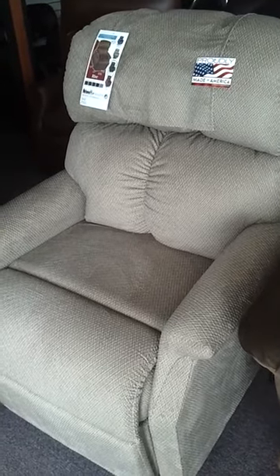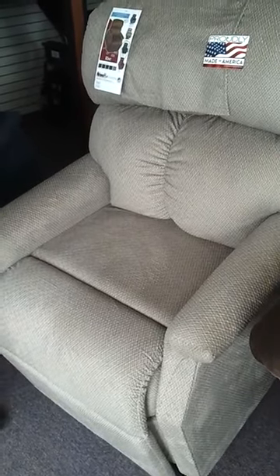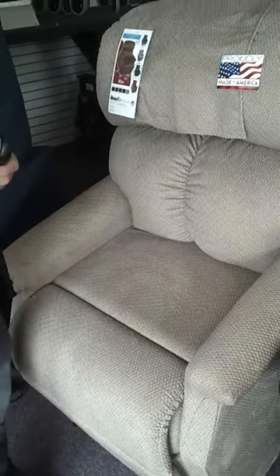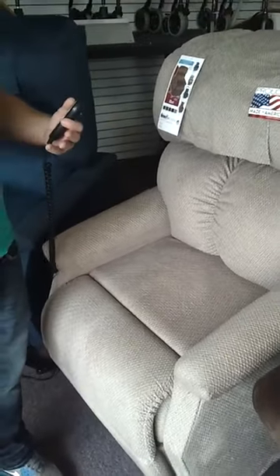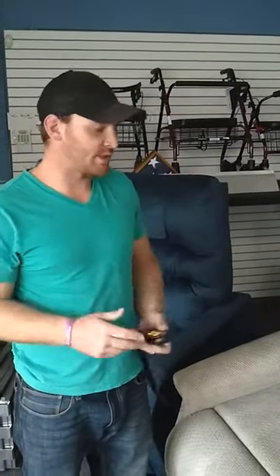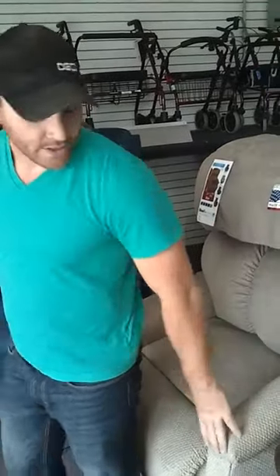There's no flash diagnostics with a lift chair. The main problems with your lift chair are how people sit into it — that's where you start getting the pops and all the little noises. Instead of plopping in from the side where you're bending the scissor mechanism, you want to get into the chair squared and easy.